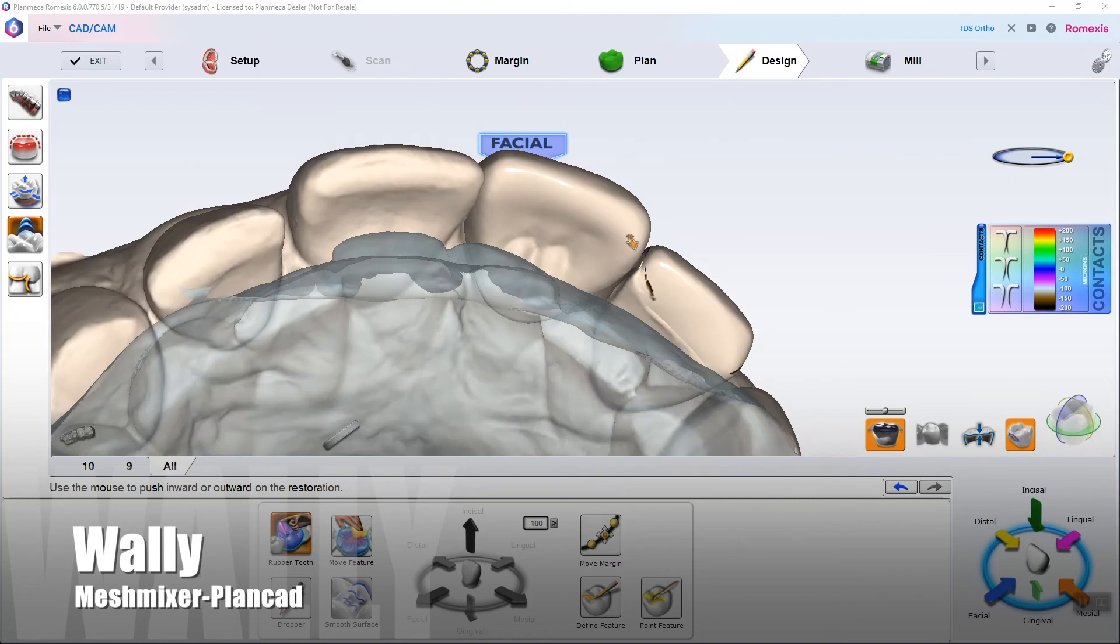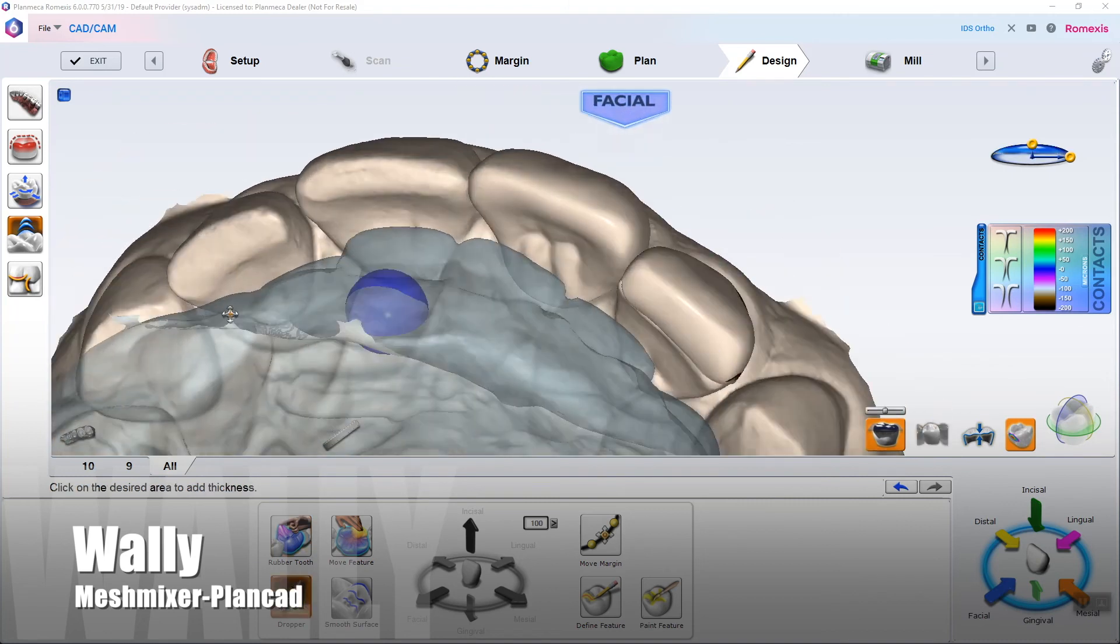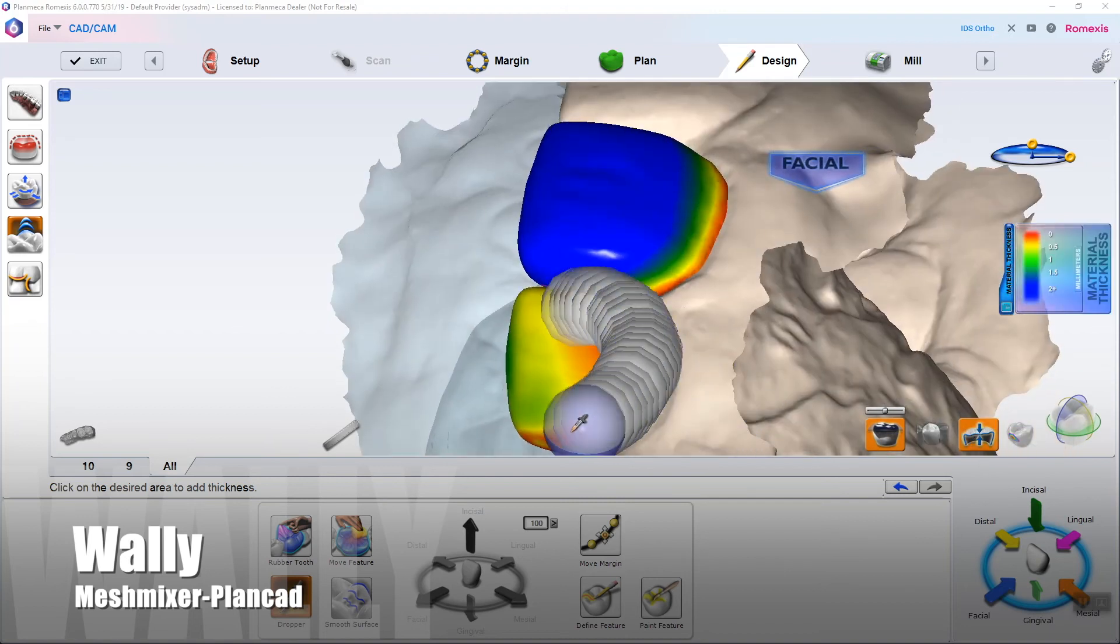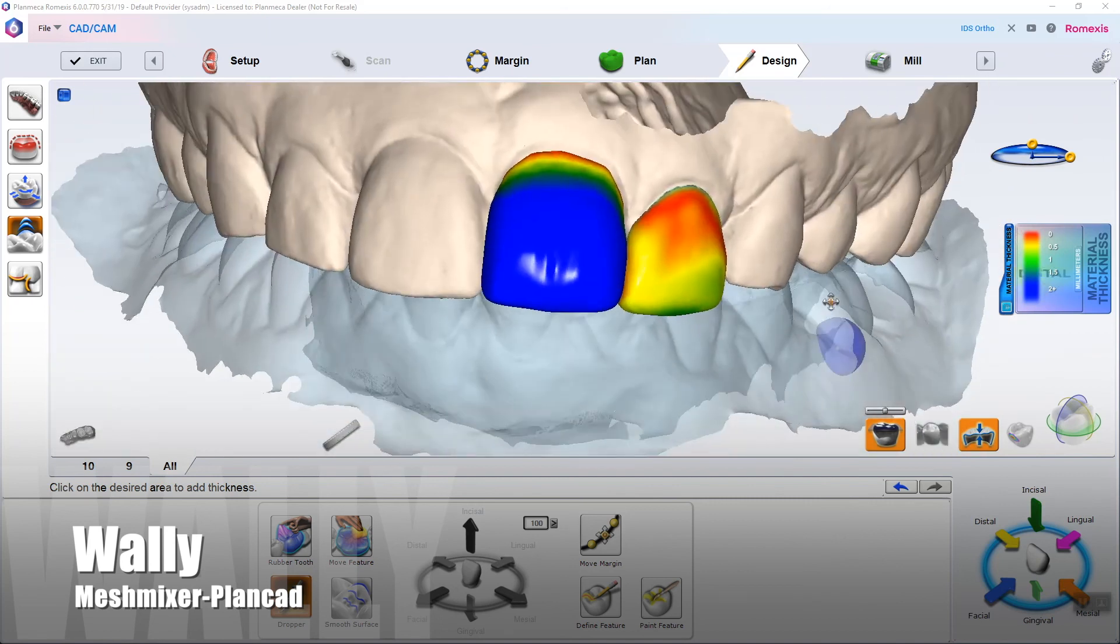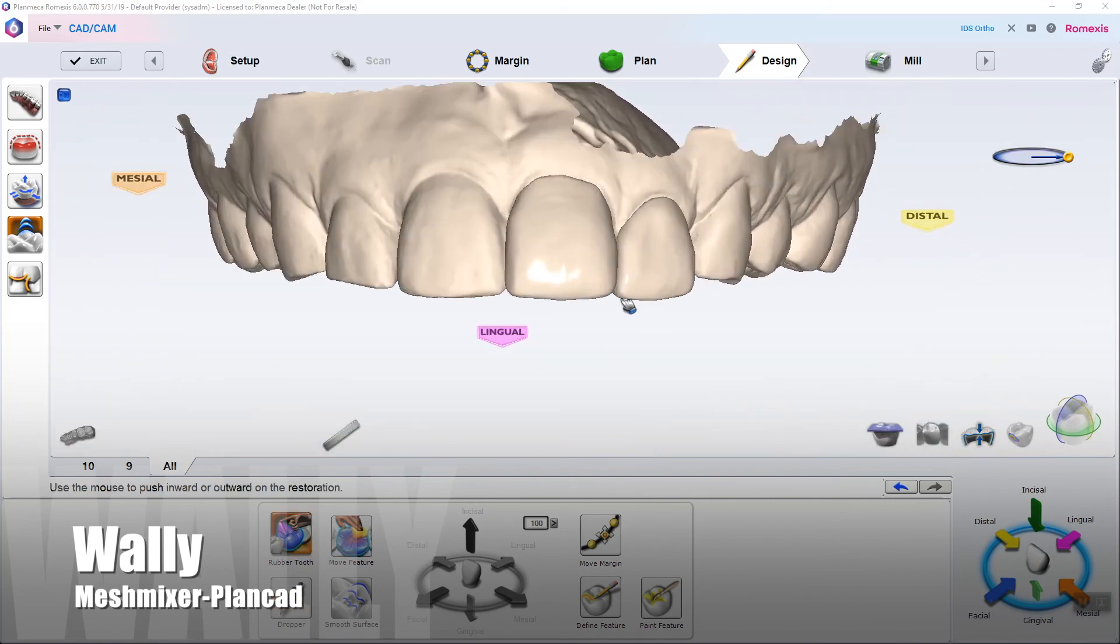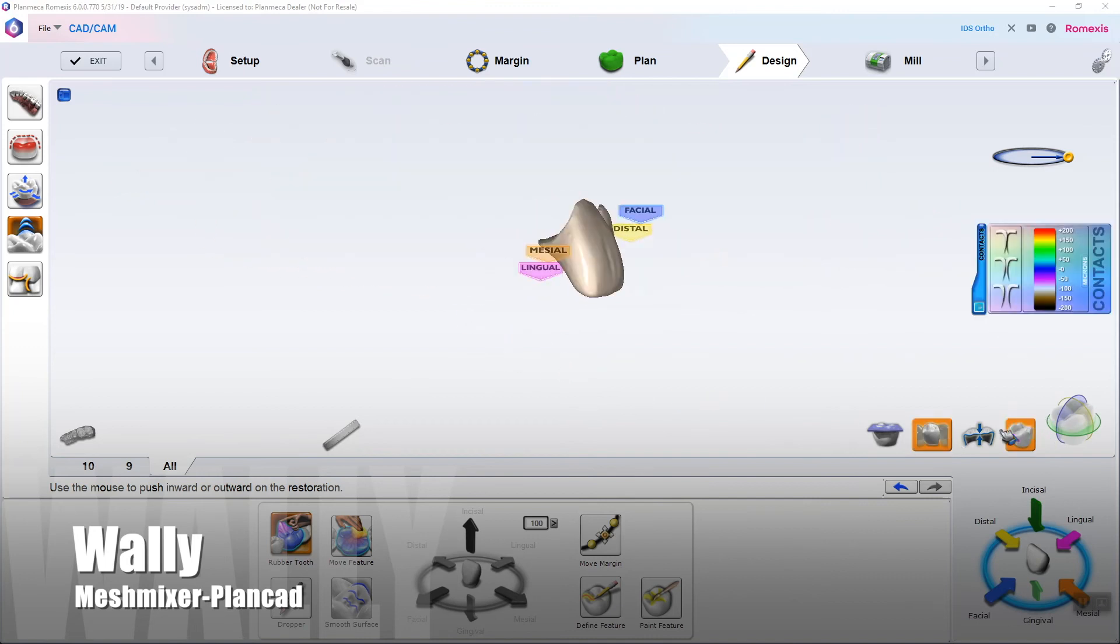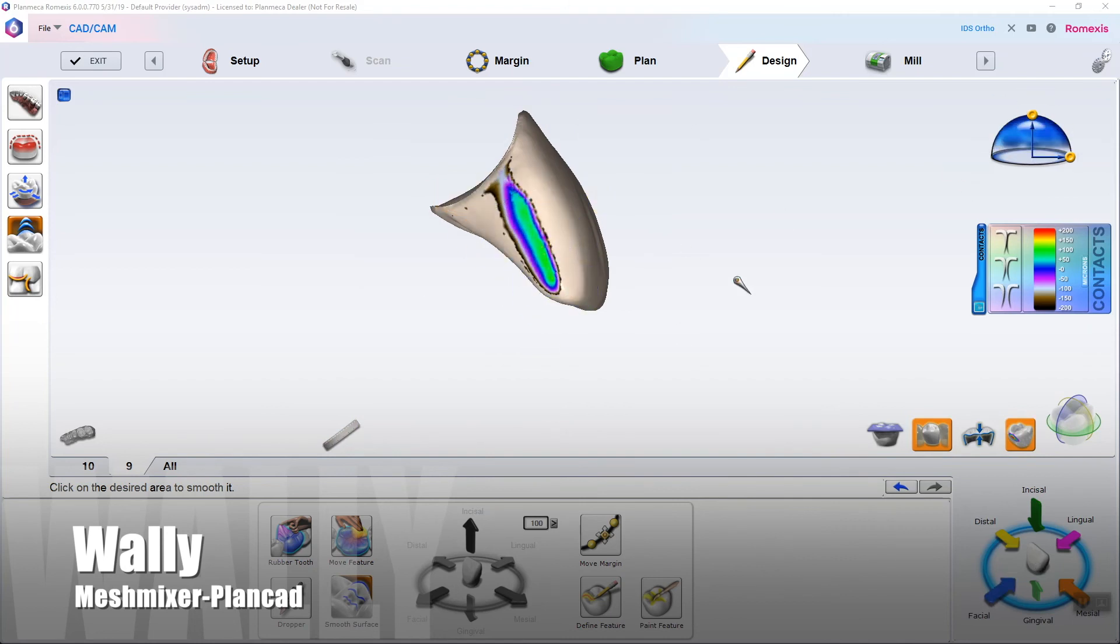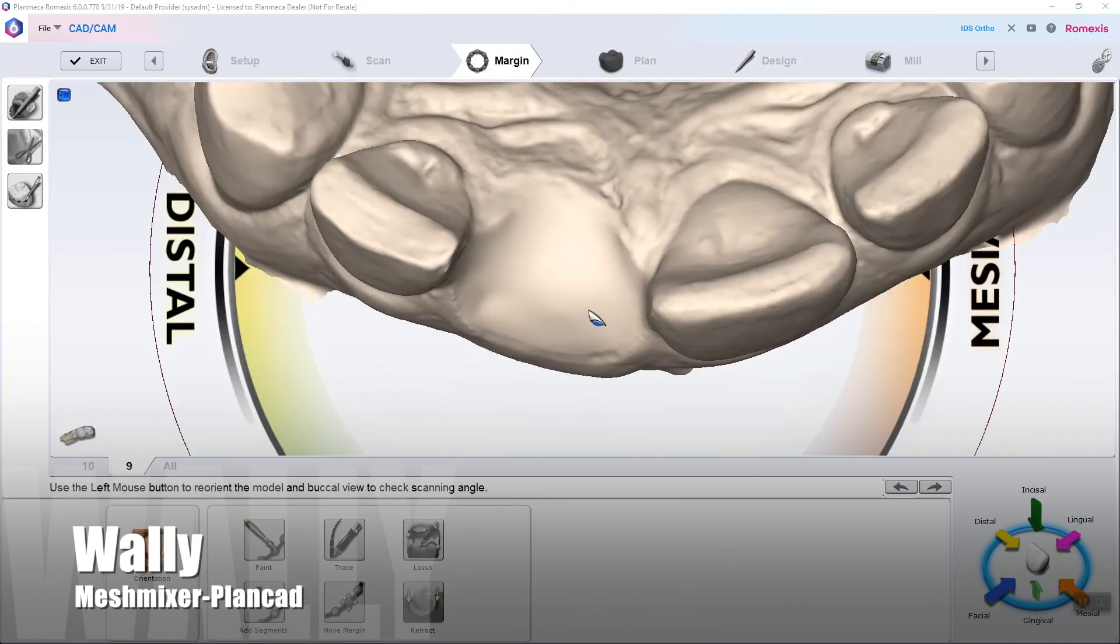But here I am in slice view. I'm just making sure I have no occlusal contact on that pontic. And then I'm thickening up using dropper here on default strength. Because I'm going to be really thin with this veneer. You can mill it out of Emax, resin, whatever you want to mill it out of. Understanding that we're a little long on the incisal edge of 10. Completely reversible, though. Now, proximal contacts, using smooth tool, maximum strength, getting this kind of really beautiful teal green look to it.